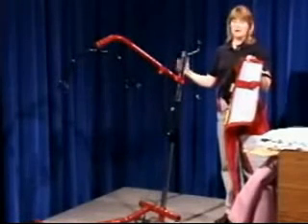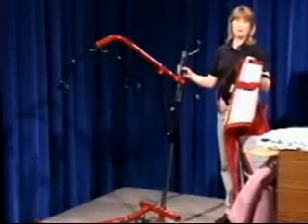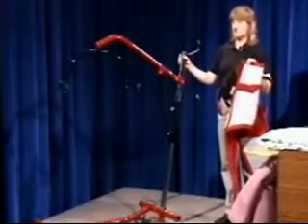Most facilities require two of you to be working with the patient when you're using a lift. Keep in mind that there are things you always need to think about when you're working with patients. There are considerations for the patient and for safety and for the patient's involvement. And hopefully when you're out working, these things will pop into your mind.